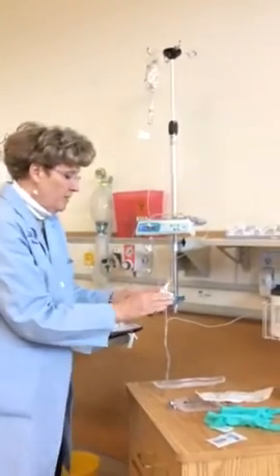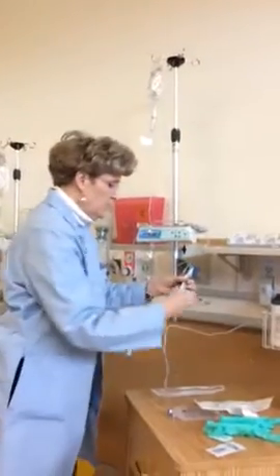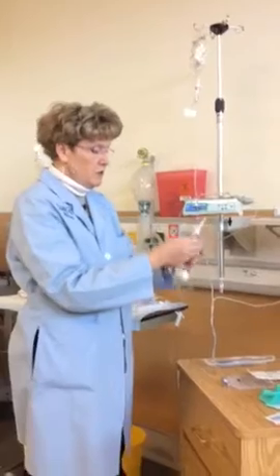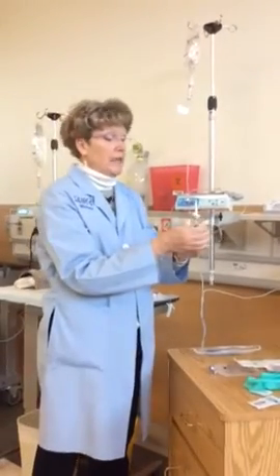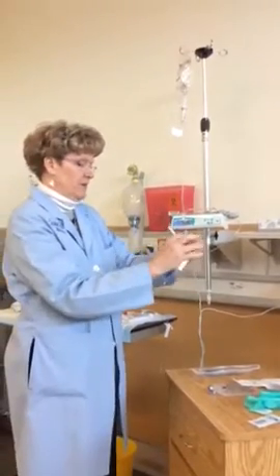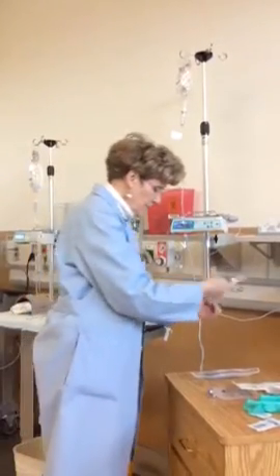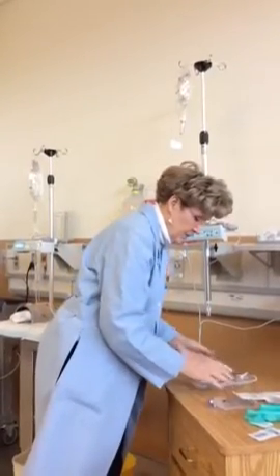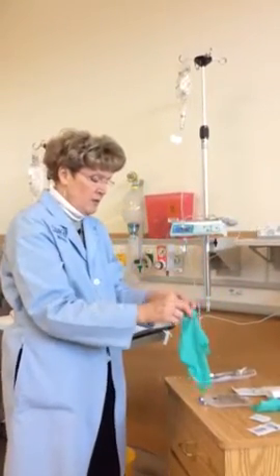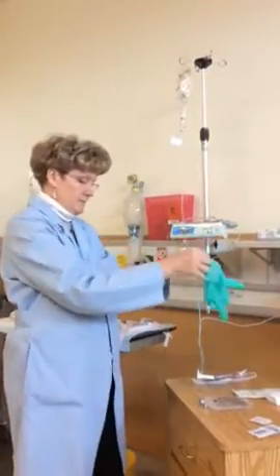Same thing, my IV tubing has its little wrapper on here. We're going to get rid of that. I have a hanger for it. First thing I do when I get my tubing out of the bag is what, Jane? Clamp it. Clamp it, or it'll be running in your shoe for sure. All right, untangle all my knots here. So now my tubing is ready for me. And I'm going to get my gloves on before I open and spike this IV drug.